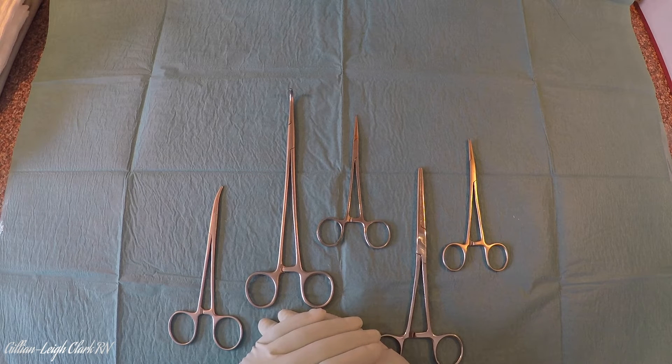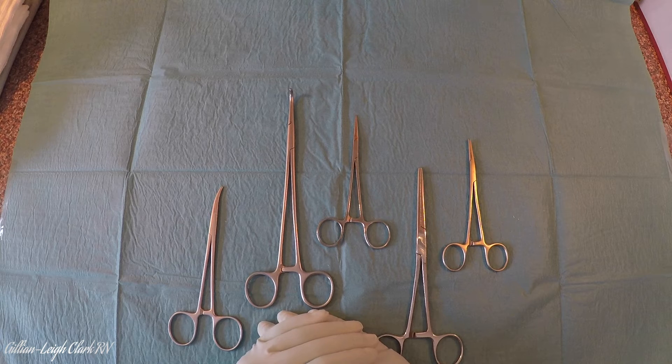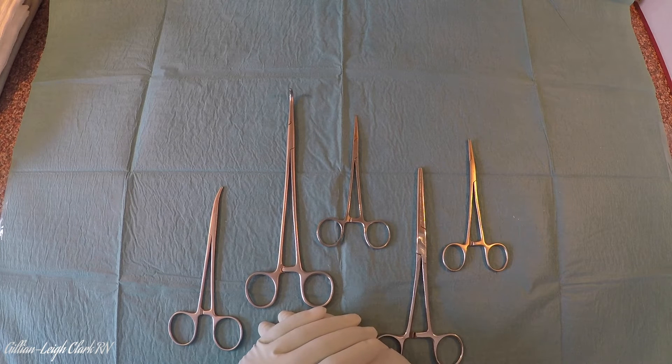When you're starting to learn instruments, it can be extremely daunting. There are so many to look at and learn, and it's very hard to know one from the other. I often find it easier to start with a group or family of instruments, and my favourite one to start with, especially when I'm teaching, is artery forceps. If you can identify artery forceps on your tray of perhaps 80 to 100 instruments, then you'll probably immediately cut your tray by half with the knowledge you have.